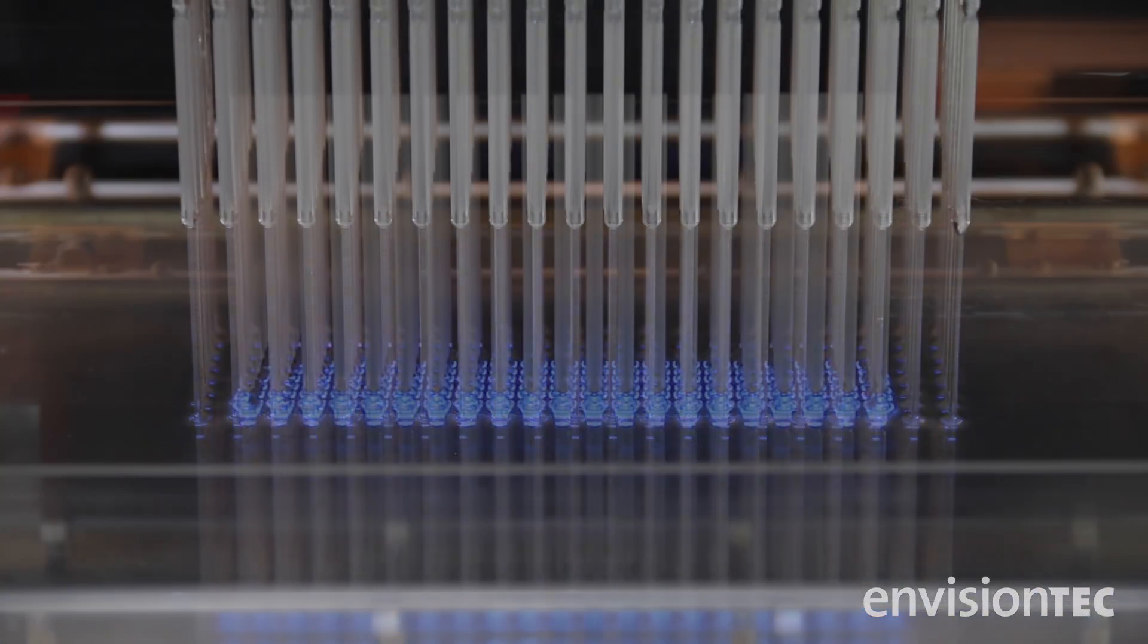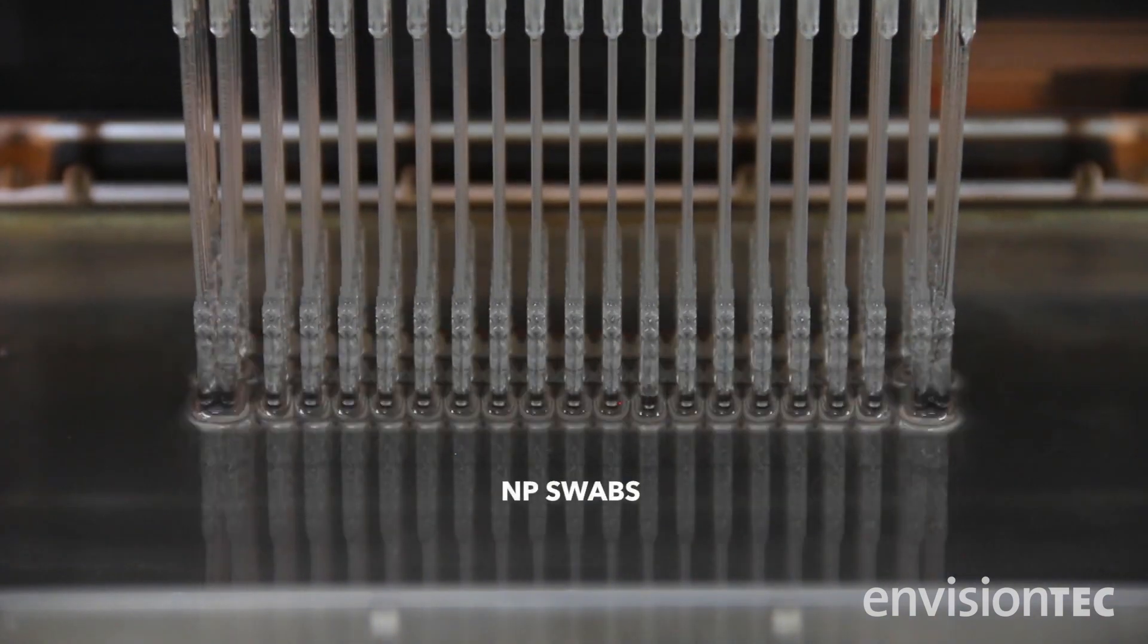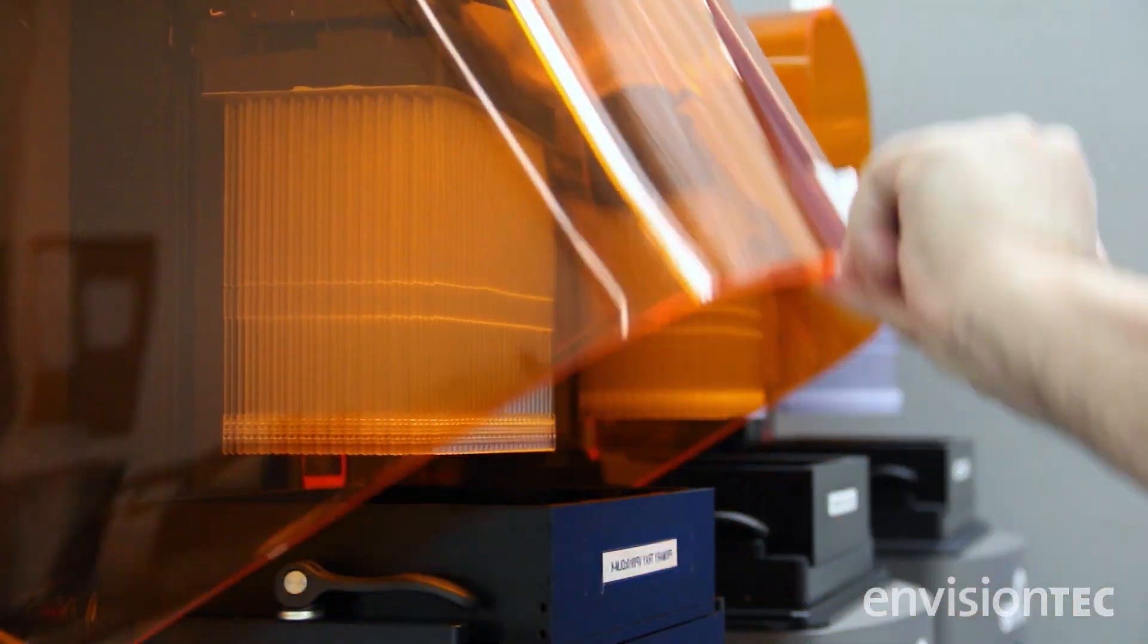One of the biggest things that we're doing is 3D printing nasal swabs to be able to test Americans all across the country, and we're doing this day in and day out.